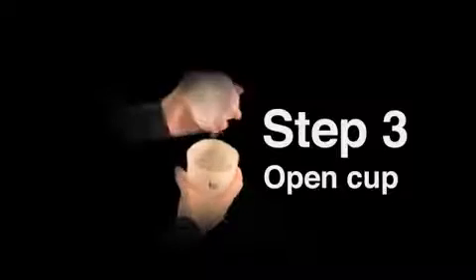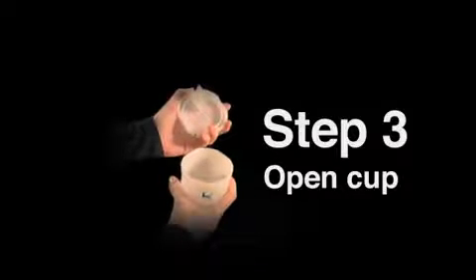Open the mixing cup you will be using. Twist the top to unlock and pull the lid off. Set the lid aside until the alginate is placed into the cup.